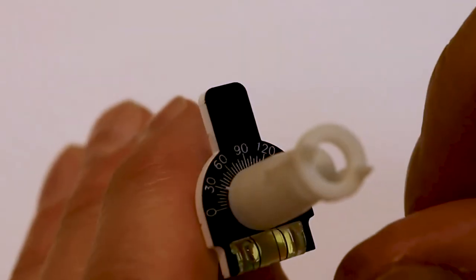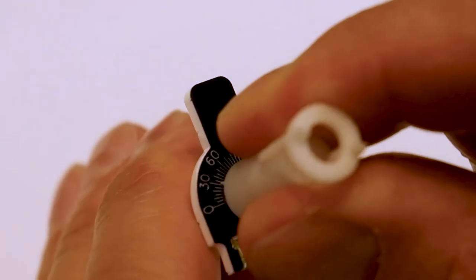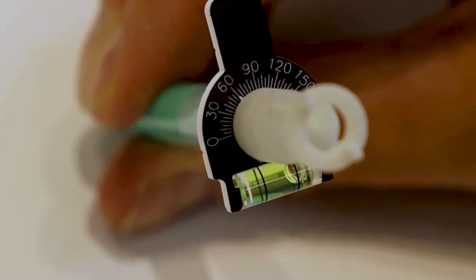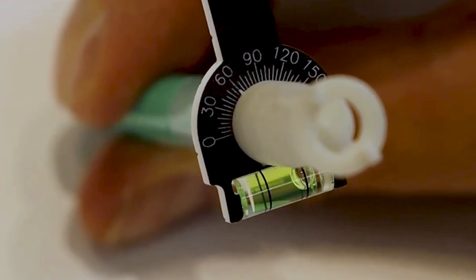It's very easy to move the axis if you need. You just hold the pen with one hand and then you gently turn the cap with the other hand and here you can see I've moved it to 60 degrees. It's nice because it stays in position and does not change as you apply the ink to the patient's eye.